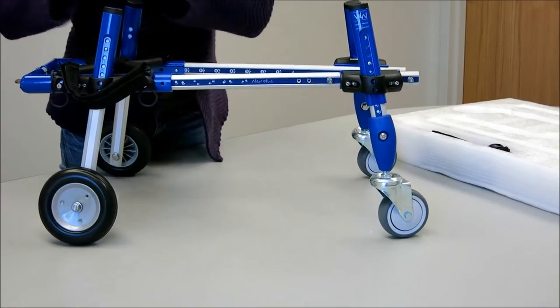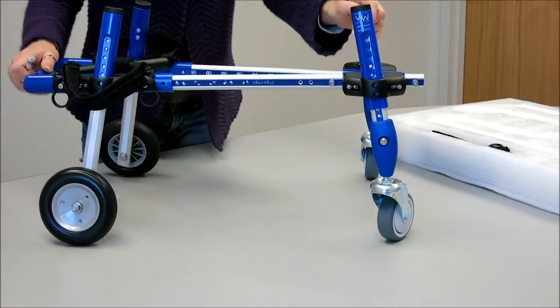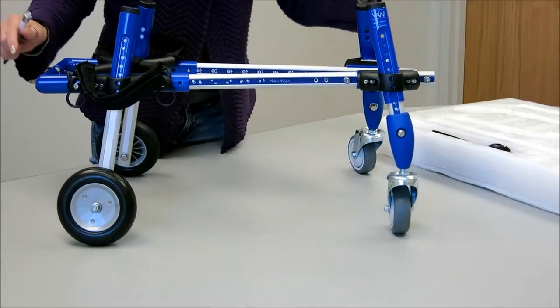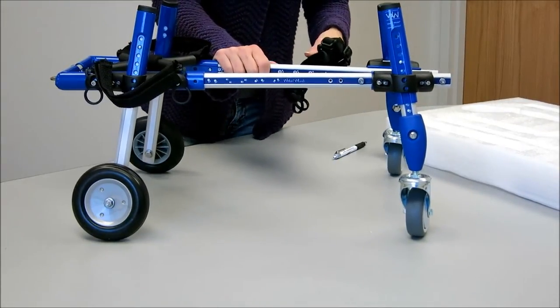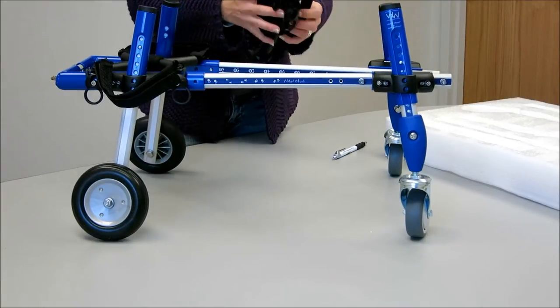Okay, you want to make sure that the side extenders are parallel to the ground and you set it to the correct length for your dog. You no longer need the front harness that came with the rear cart that you were using to clip into the side extenders.